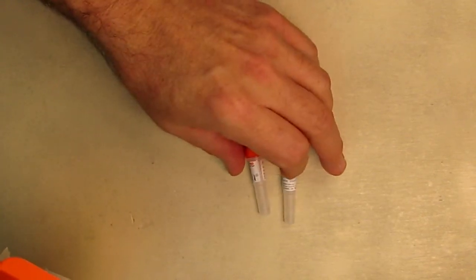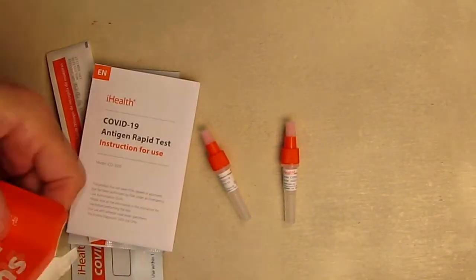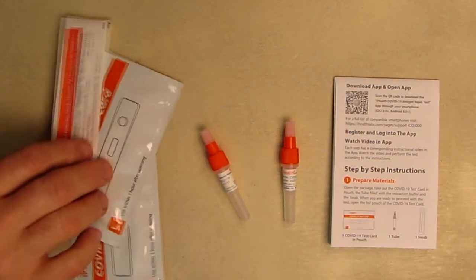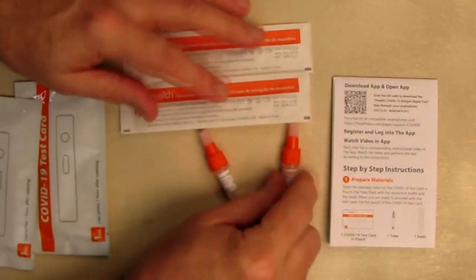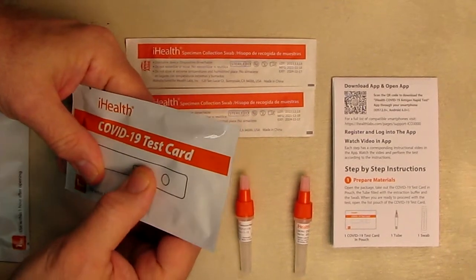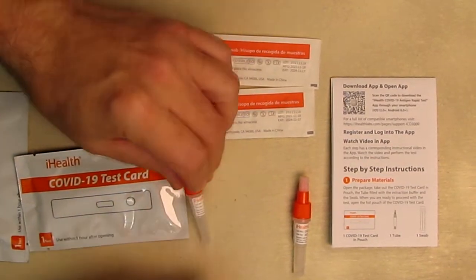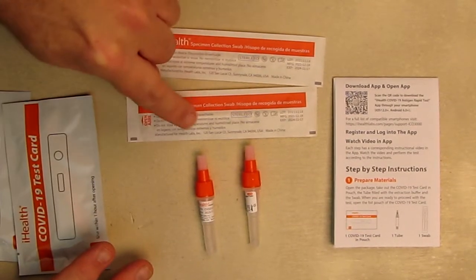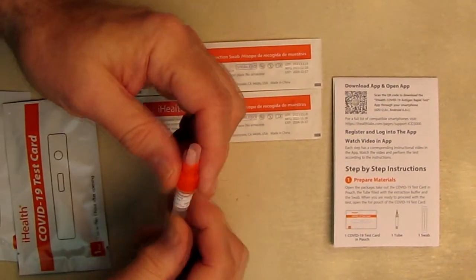Inside there are two vials that hold the liquid and your swab tests. There are step-by-step instructions in case you don't want to watch the video. Here are the two swabs you're going to use inside each person's nose. Here is the test card, and included in each vial is the fluid — you can see the fluid right there — which is what's going to have the reaction when you put the swab in your nose and then into the canister.